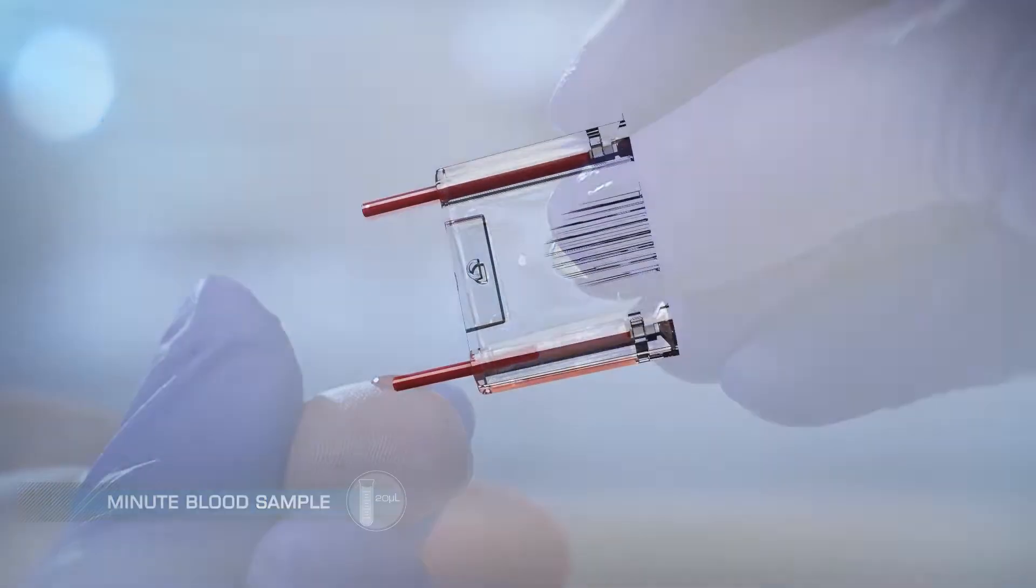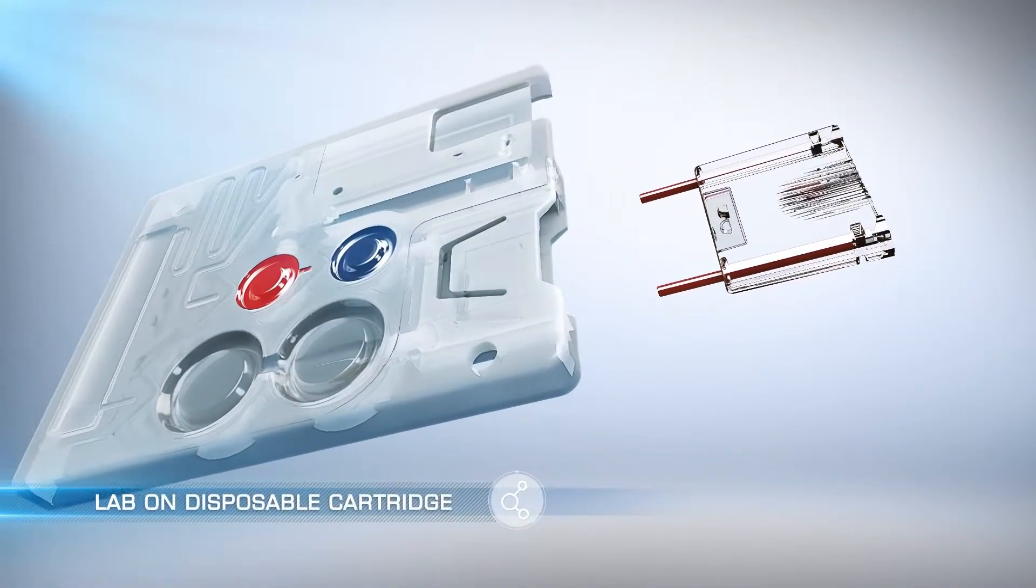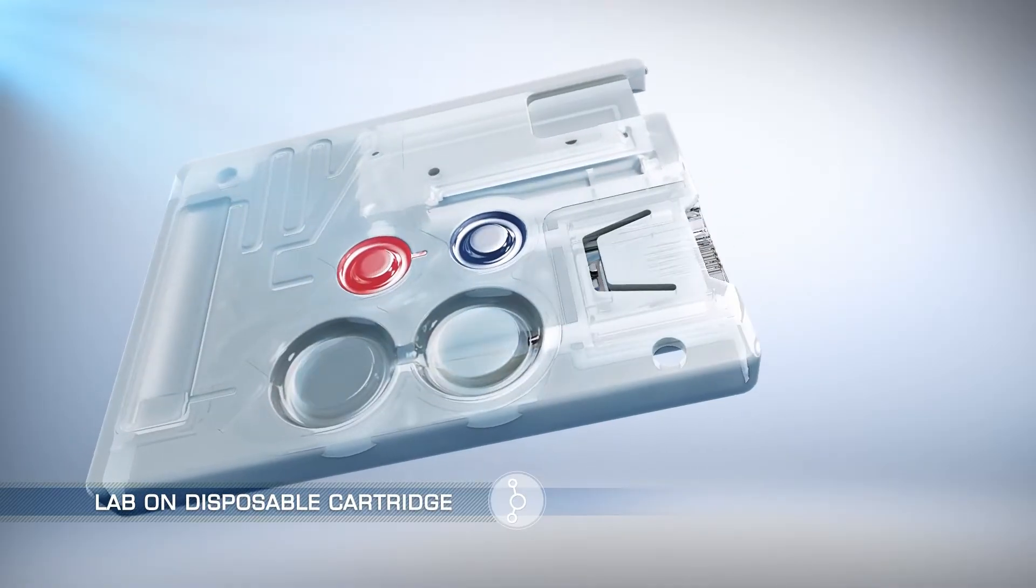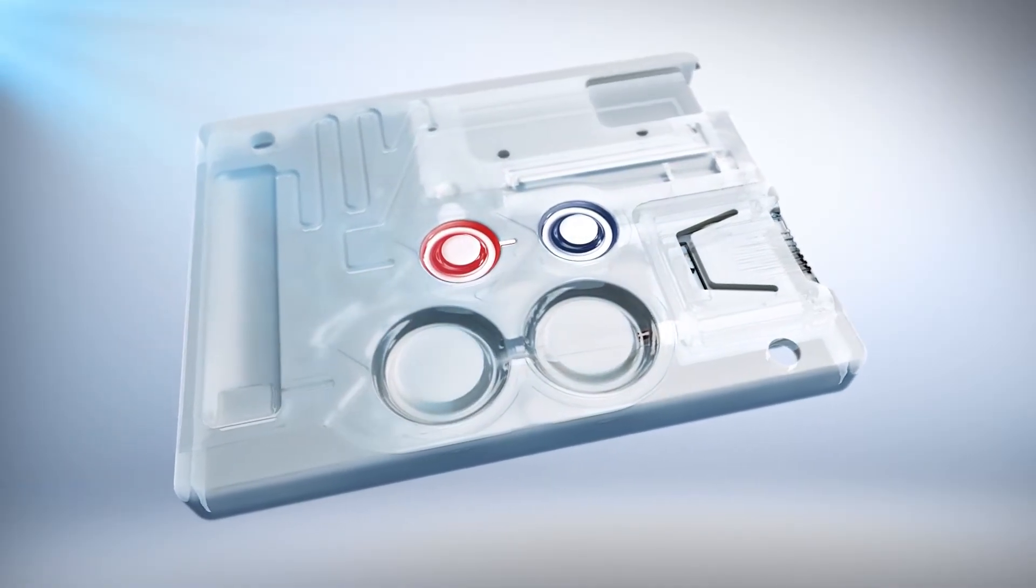The Reader uses a disposable cartridge, ensuring ease of use and preventing any cross-contamination. No calibration or maintenance is required.